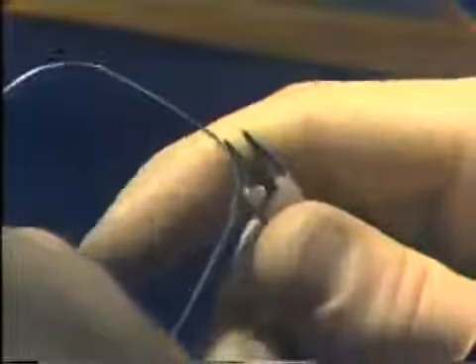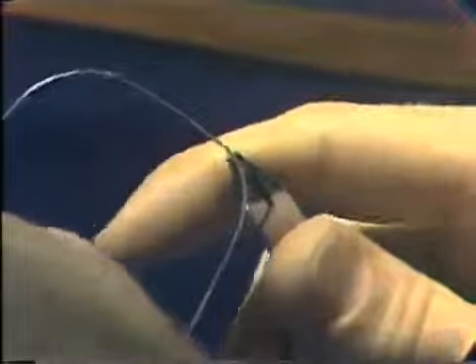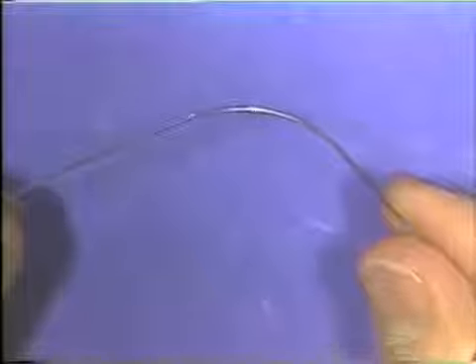The areas that were too flat are simply bent in the usual manner to give them some curvature. With this technique, you can continue to adjust the wire until the curve is smooth.